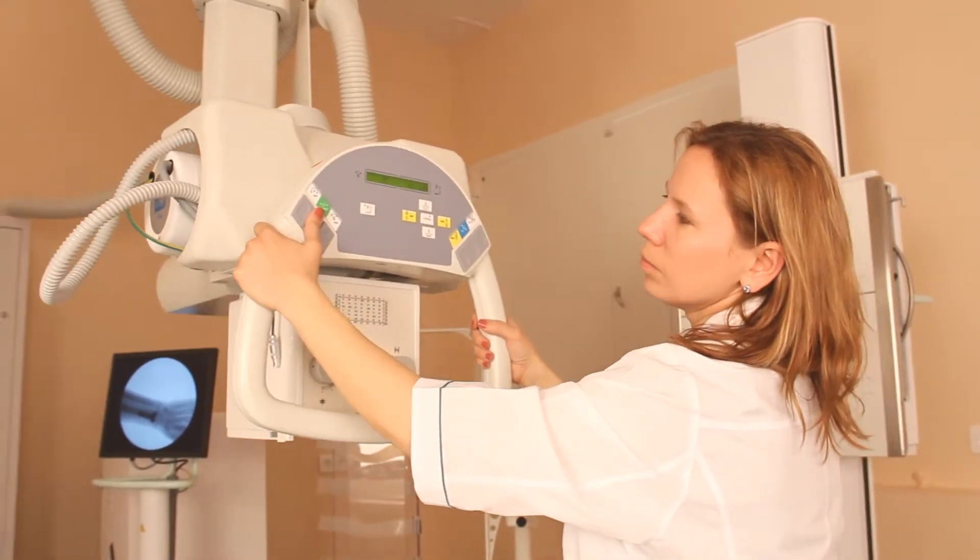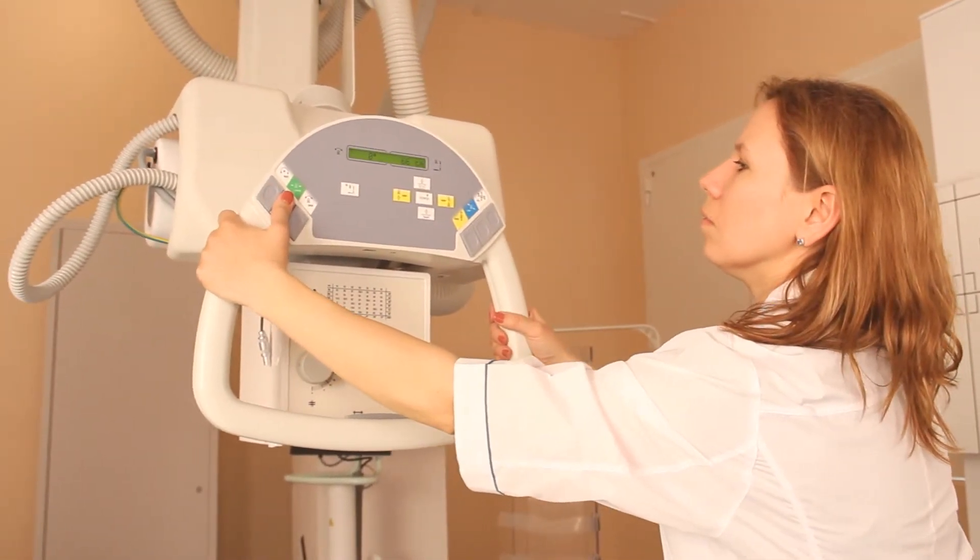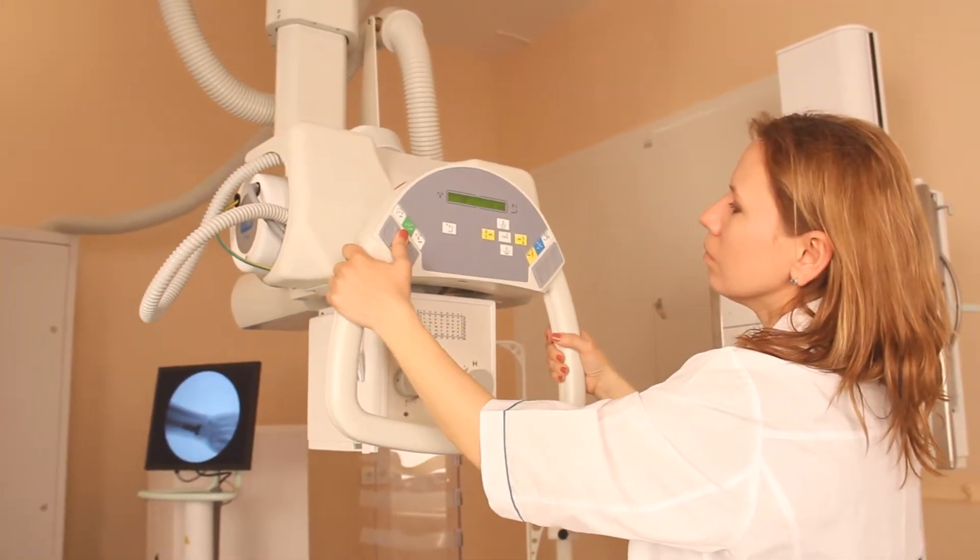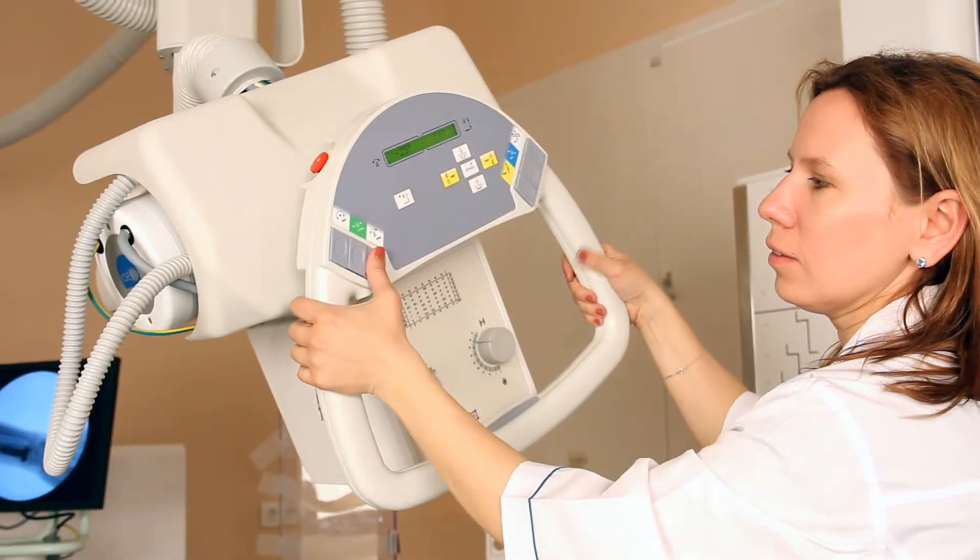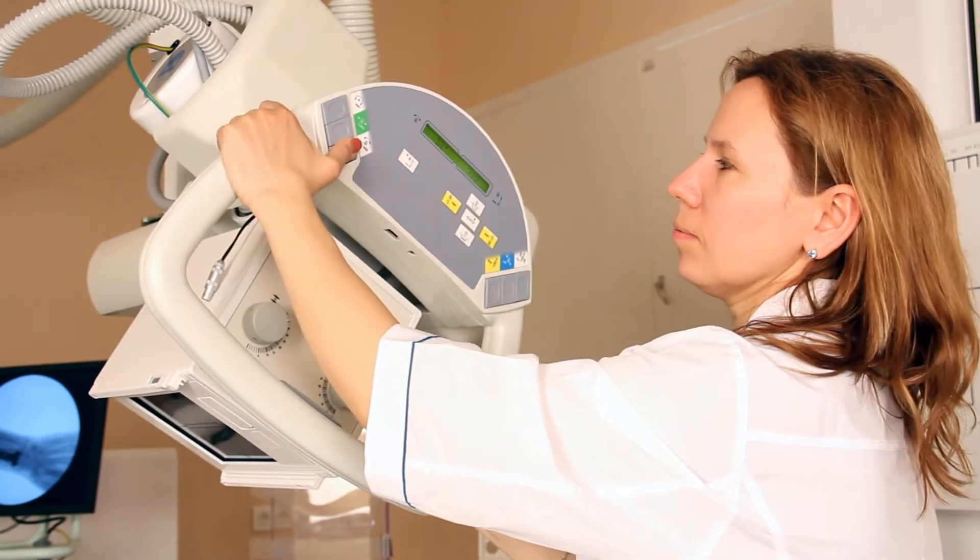It may be rotated along its horizontal axis, and may be moved upwards and downwards and transversally.